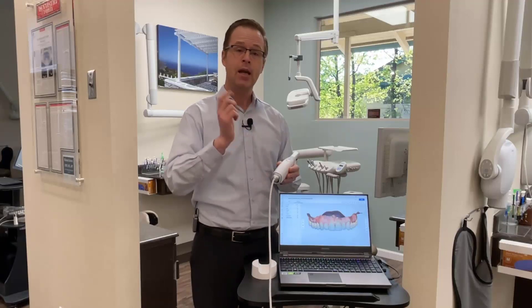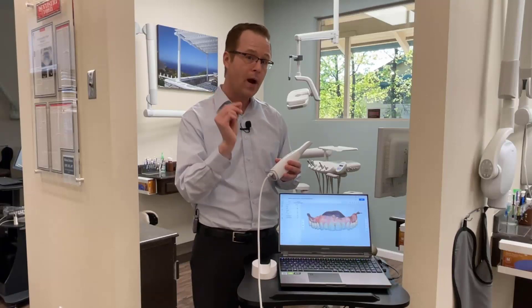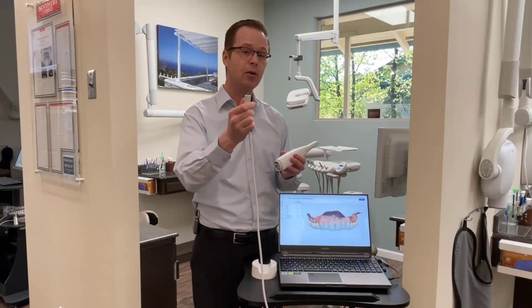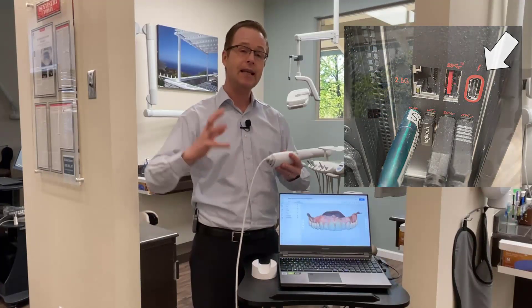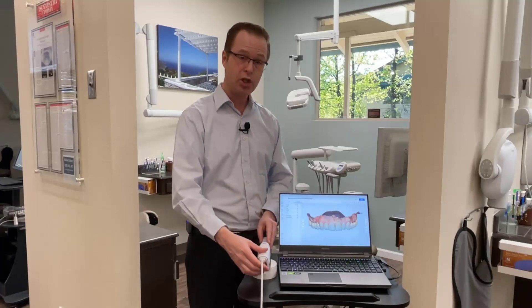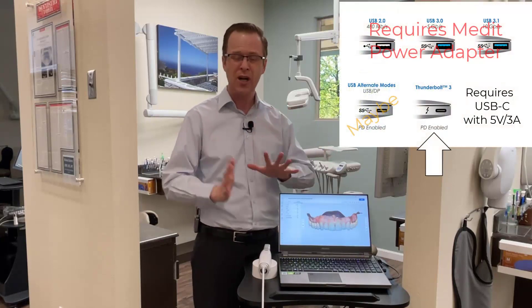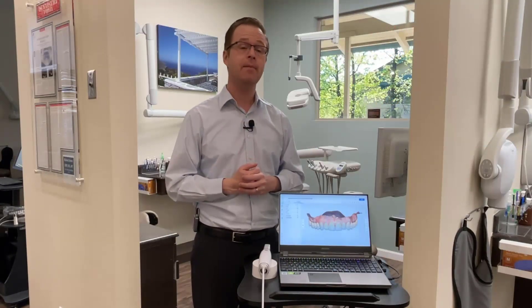What's pretty cool is that the i700 allows you to directly plug the other end of the cable into a powered USB-C port, so it doesn't necessarily need that large powered brick we're used to with the i500. It does come in the box and ship with the i700 itself, so if you don't have a powered USB-C port or you're unsure, just stick with the standard rectangular USB-A 3.0 port — that will never go wrong. But the thought of not necessarily needing that inner box powered unit with all the cables is pretty cool.